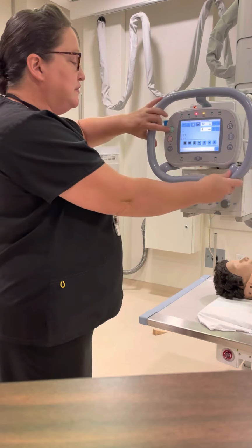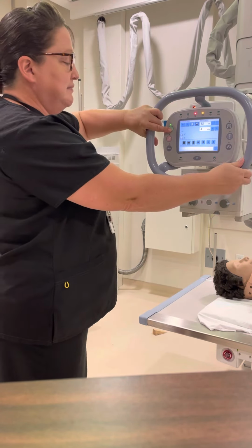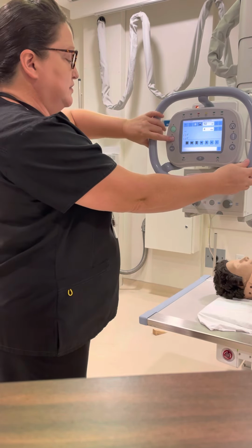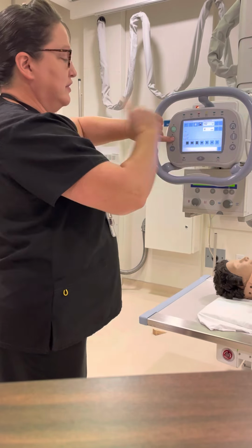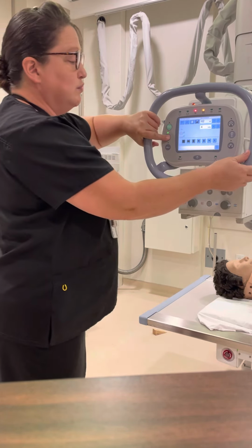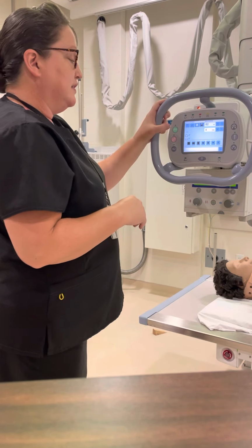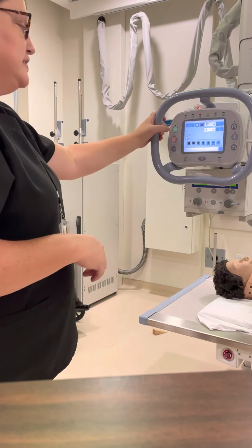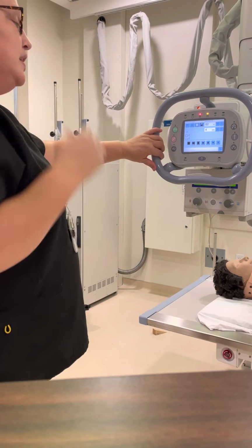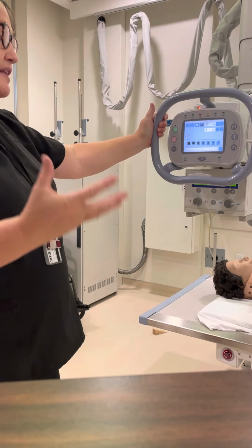But if you go to move it across the room, transverse, and you push the green button, it just won't do anything, okay? If you go to move it horizontally and you push the pink button, it may come towards you, but it's not going to go left or right, okay? So in order to align, then we need to align to the arrows that are aligned to the indicators that indicate that our tube is aligned to our bucky.